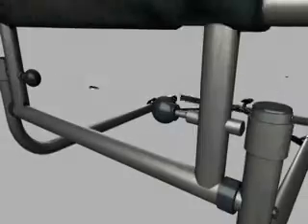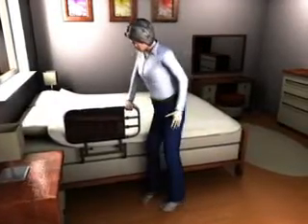As you can see here, the Easy Adjust Bedrail from Stander comes together magically without any tools. It attaches to the frame of any home or hospital bed.